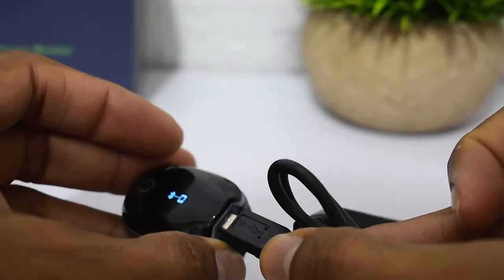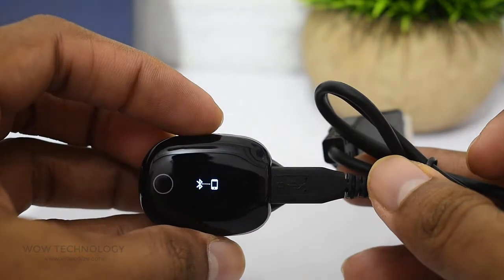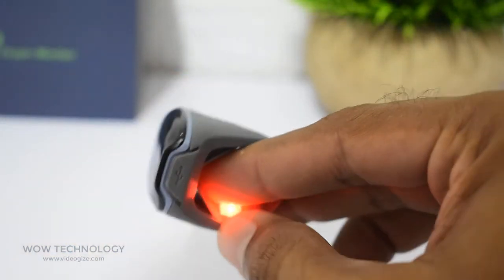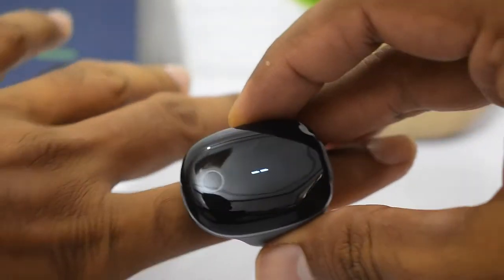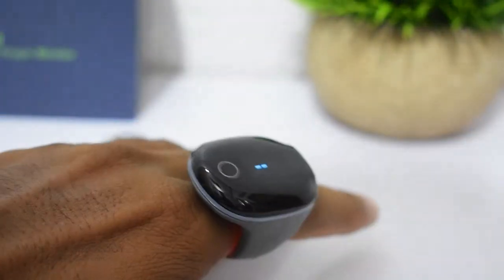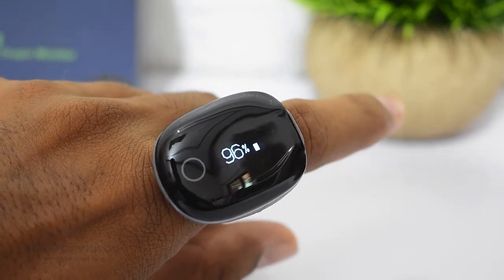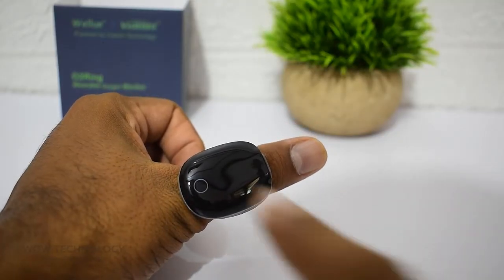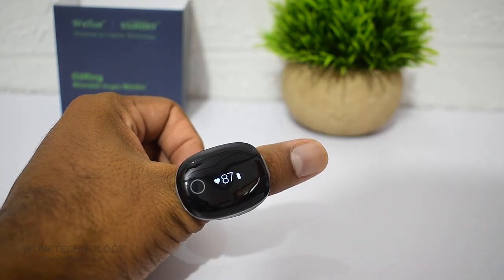There's a single micro USB port for charging hidden behind a rubberized flap. Inside the ring, the LED light source has a capacitive surface which automatically lights up as soon as you wear it — there's no on/off button or fiddling with an app to get started. After a while the display times out, but tapping the circle icon wakes the screen up again so you can get a real-time readout.